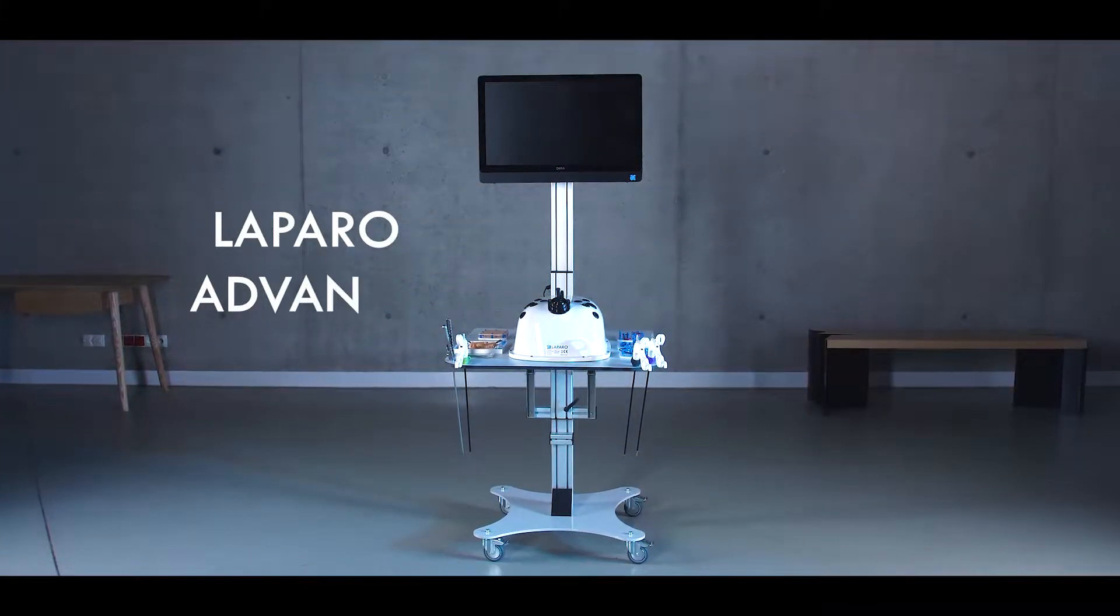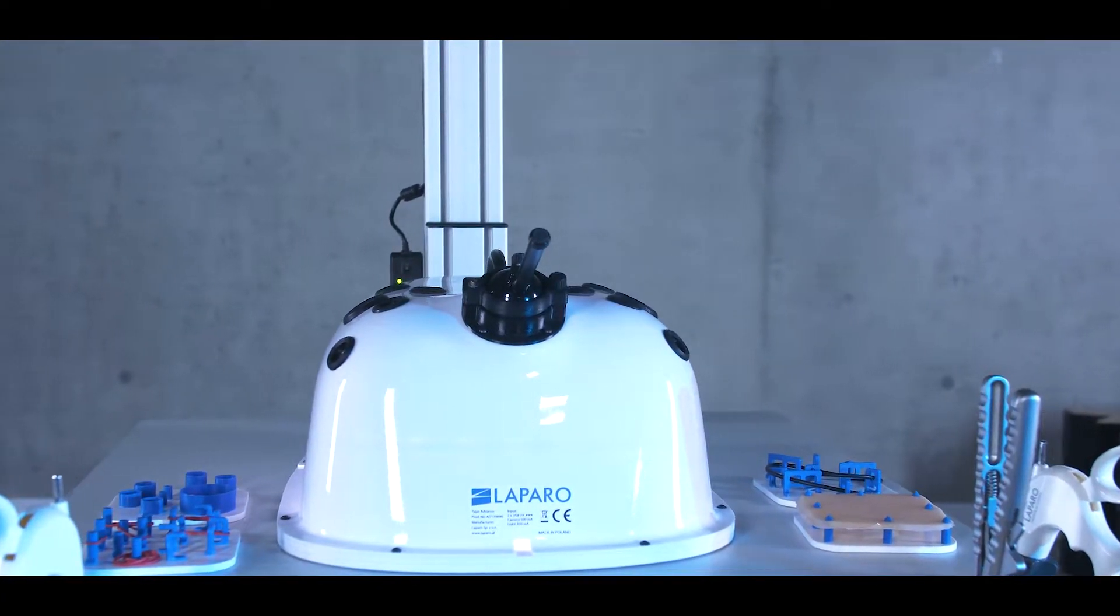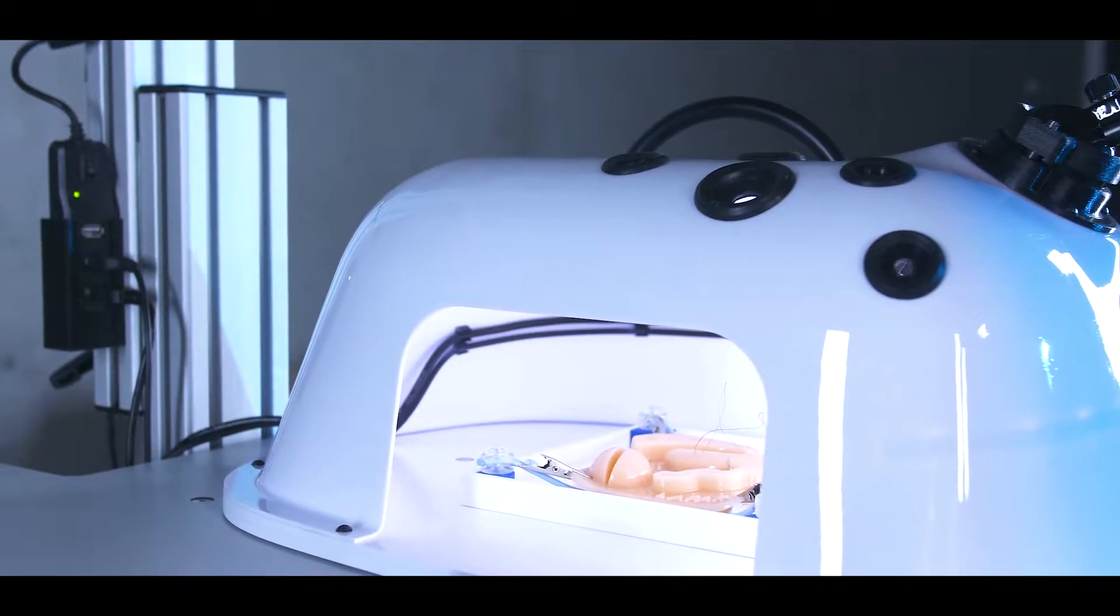Laparo Advance is a professional laparoscopic trainer. Our design provides the highest ergonomics and functionality of training while simulating surgery conditions.